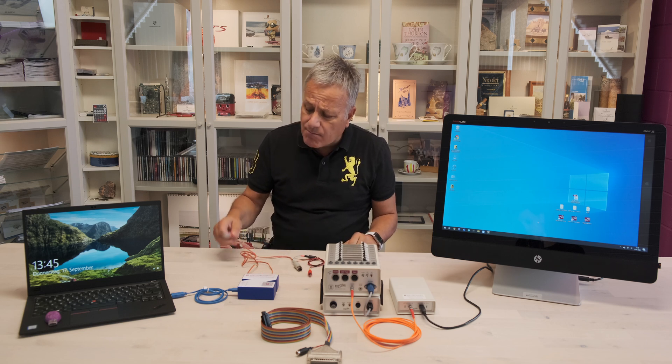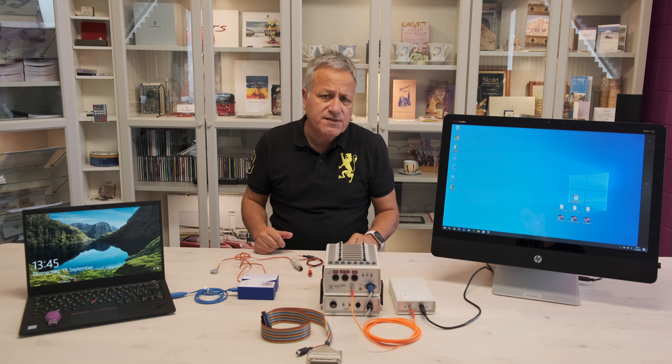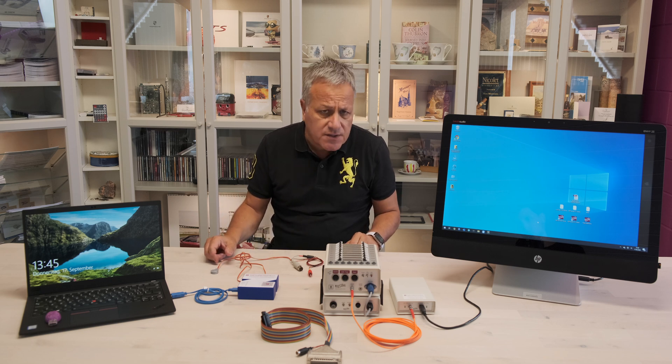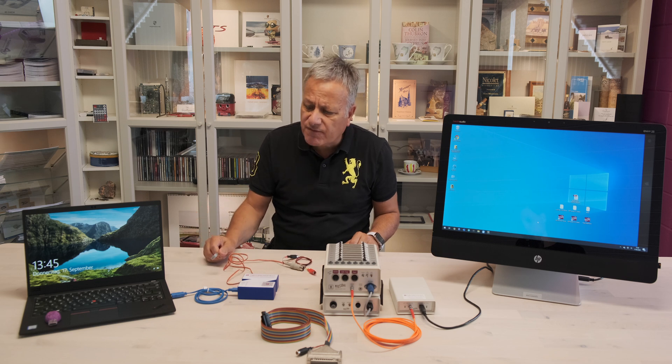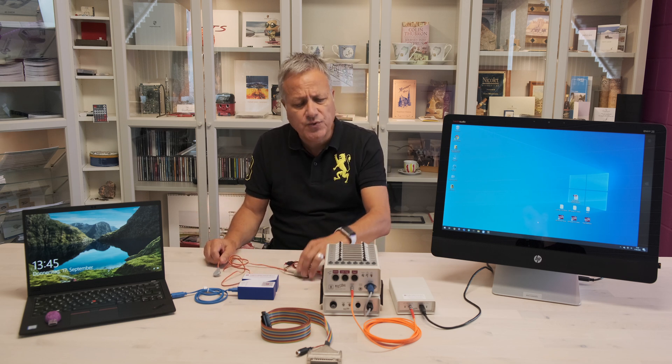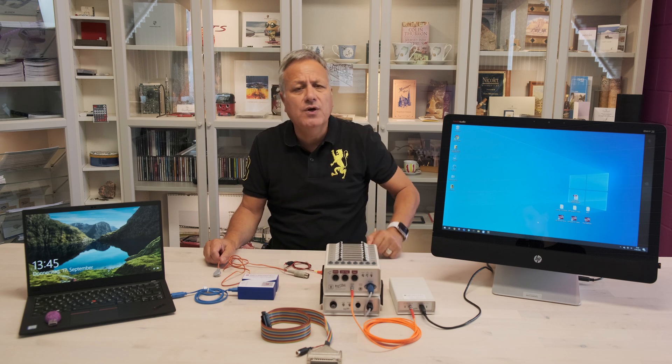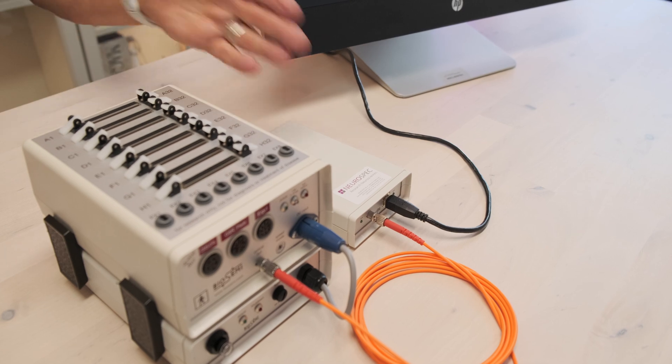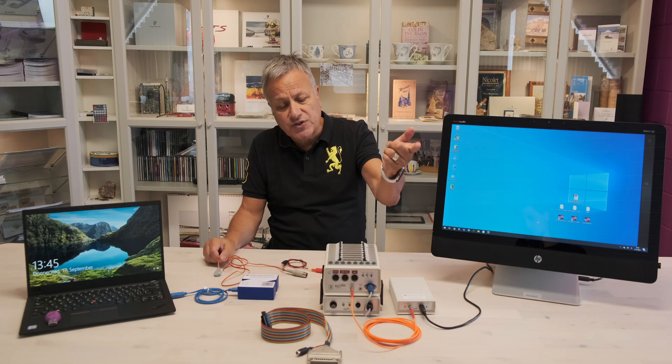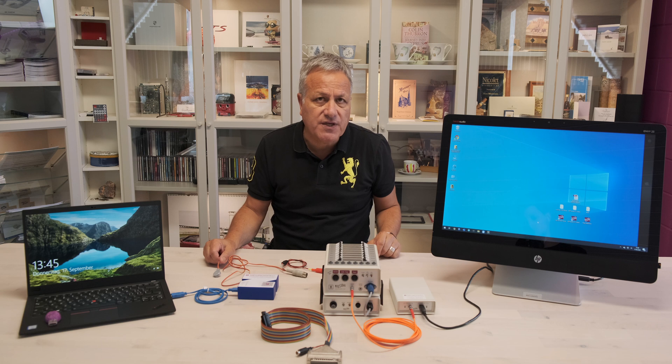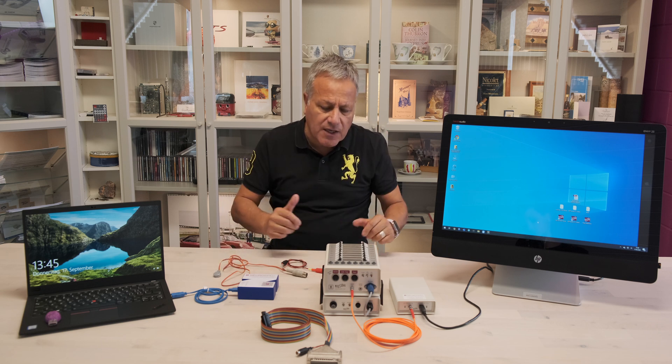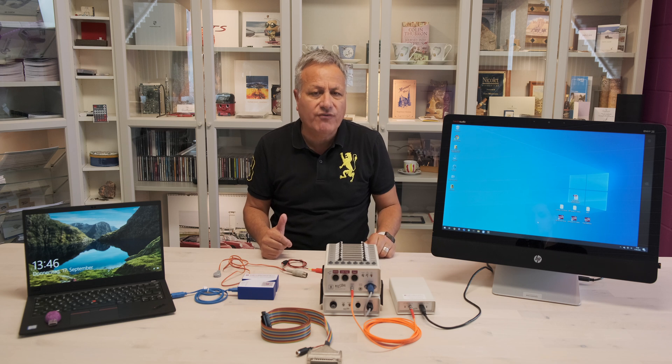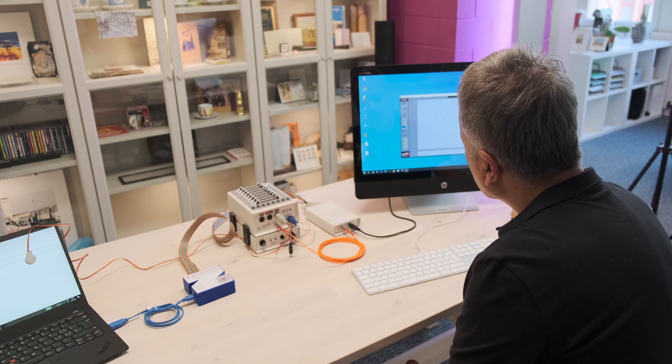We're using a modified photocell, also made by us. We'll connect the photocell to the screen of the stimulation notebook and the ERG output will route into the Active 2. Additionally we have an input that comes from the trigger which is routed also into the ERG input of the Active 2. All things acquired will leave us with three traces which we can then review and analyze.